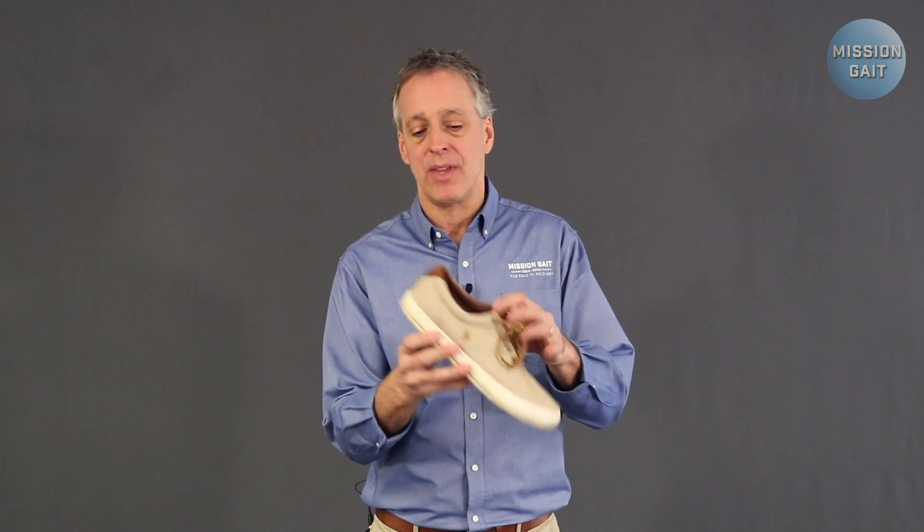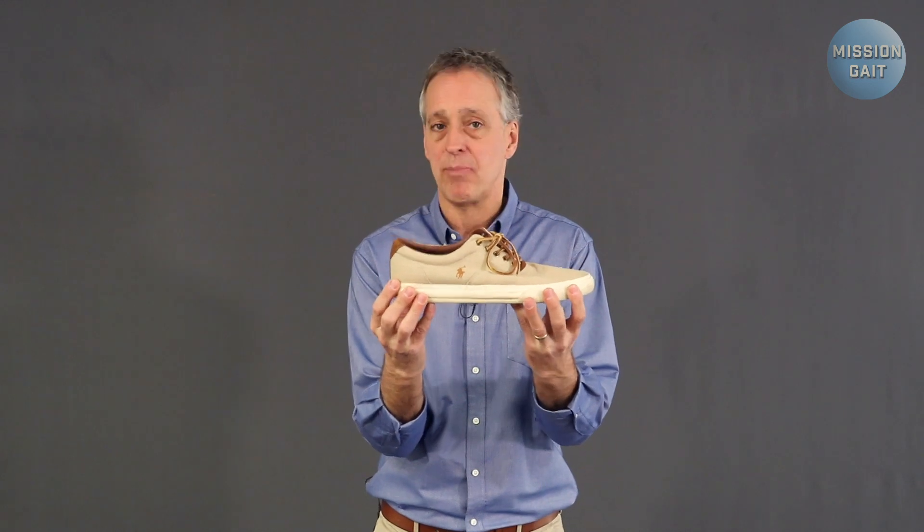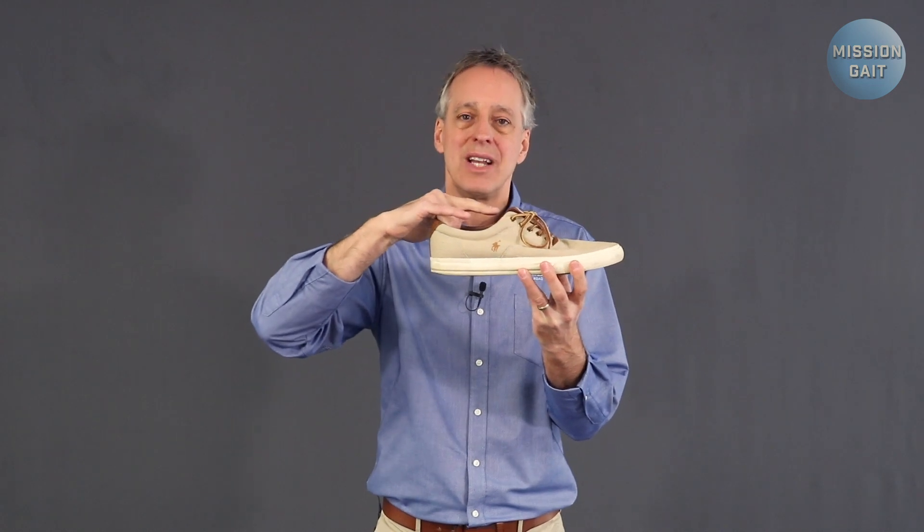A more stable option is a lower shoe. On the opposite extreme, a dockside-style shoe is very popular — it can lace up and stay in place, but it has very limited drop-off from heel to toe. This type of shoe will work, but you'll need to put wedging underneath the heel to hold the foot at a level position while walking. Putting shoes on can be a trick in itself, so shoe horns are really helpful since getting a shoe onto a foot that doesn't articulate or move up and down is difficult. Extra-long shoe horns are great if you can't bend all the way over.